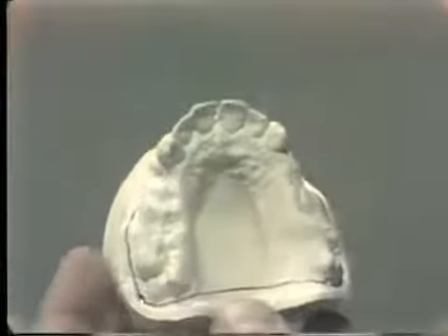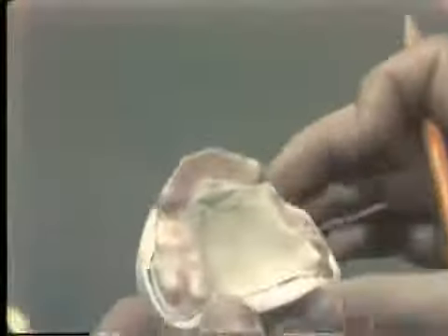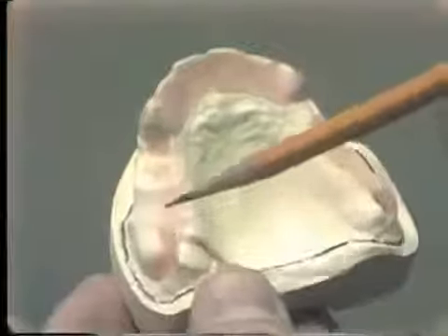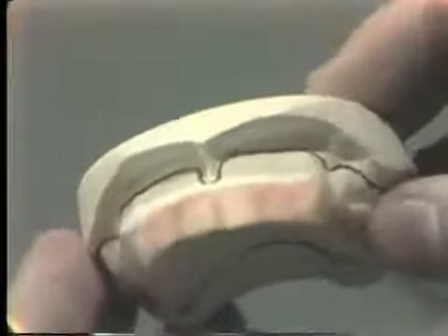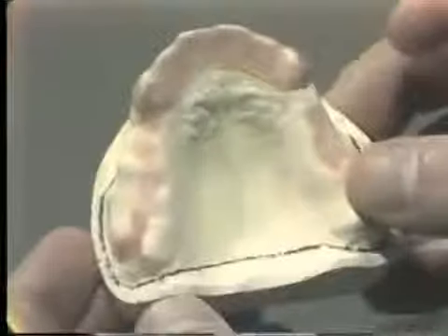After you've drawn where you want the tray to be made, the recent extraction sockets can be filled with molten pink wax, and we've done that on each posterior segment. In the anterior segment, where the last 6 maxillary teeth remain, the interproximal and gingival cuff areas can also be blocked out slightly with molten pink baseplate wax.